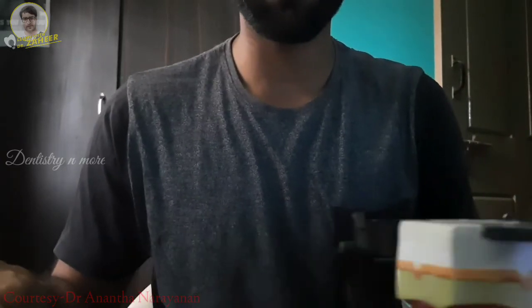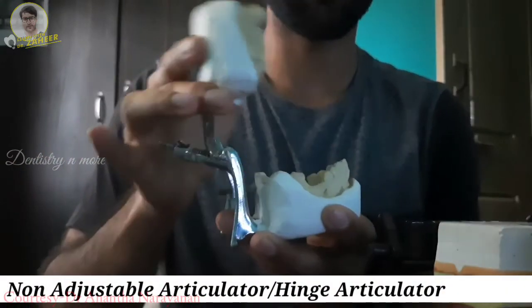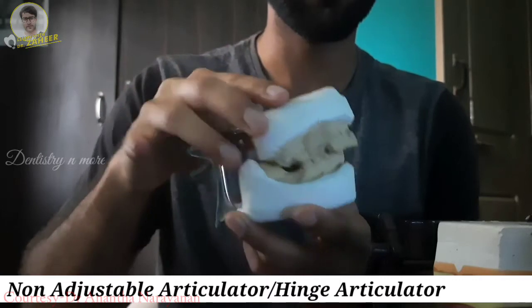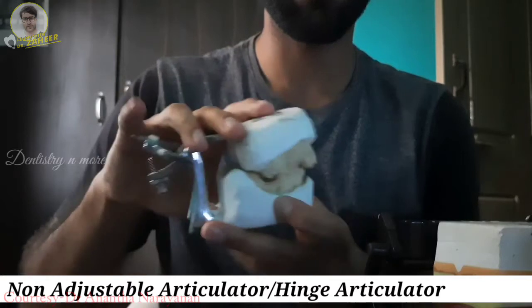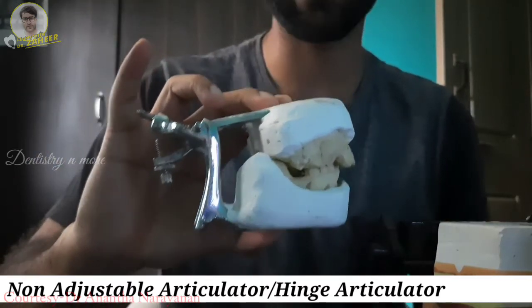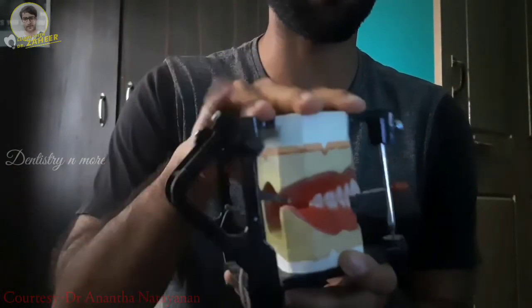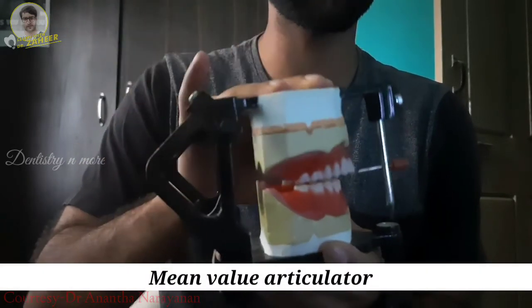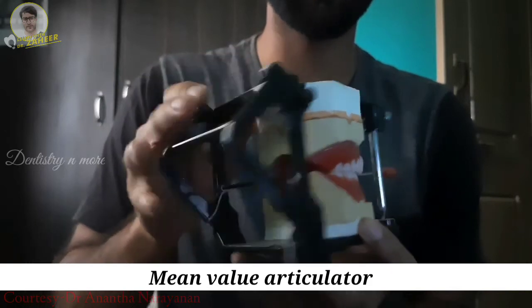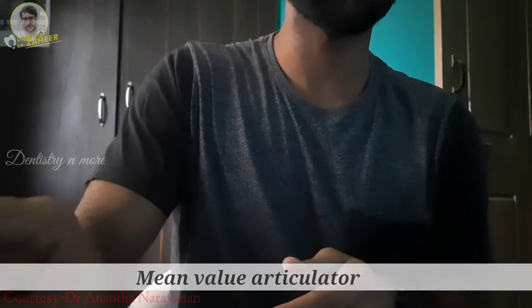A non-adjustable articulator means you cannot adjust anything — it is just open and close. Not even lateral movements are possible. This is an example of a non-adjustable articulator — this is a hinge articulator. The most commonly used one, which is the mean value articulator, is also a non-adjustable articulator. You can just open and close it with no other condylar adjustments possible.